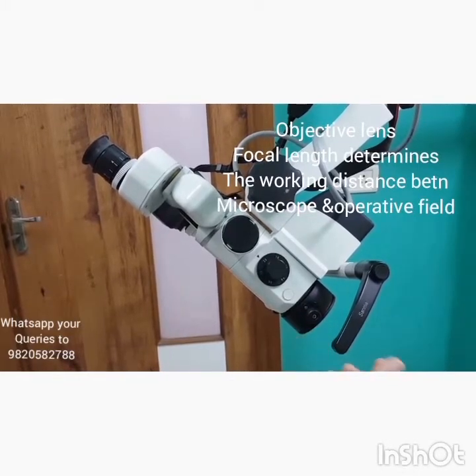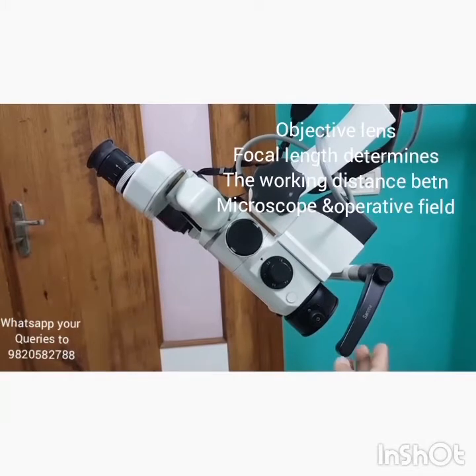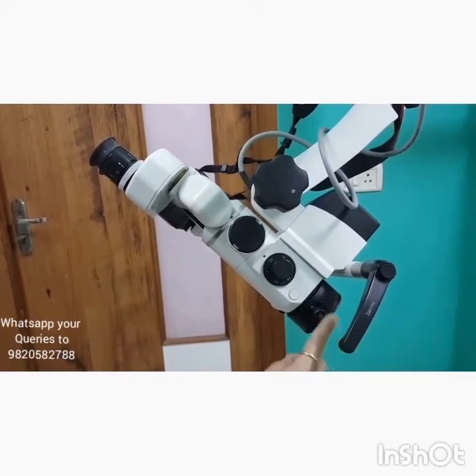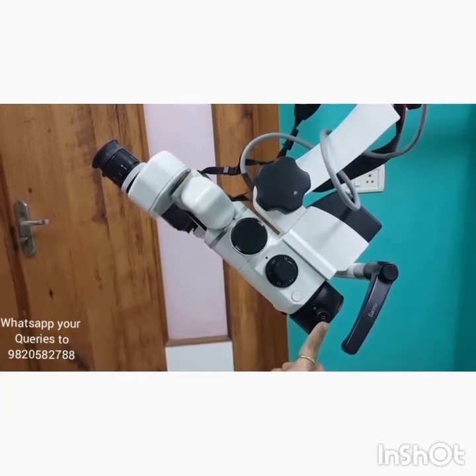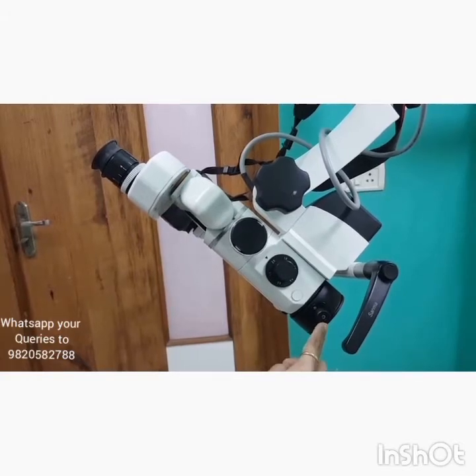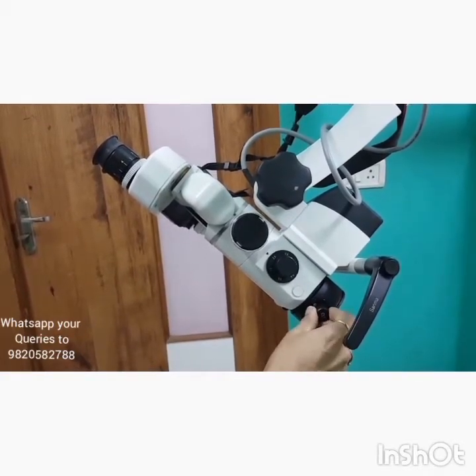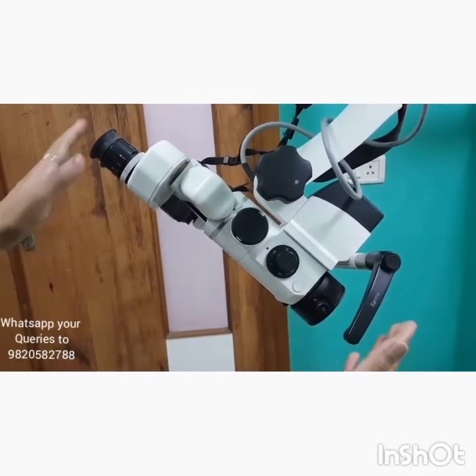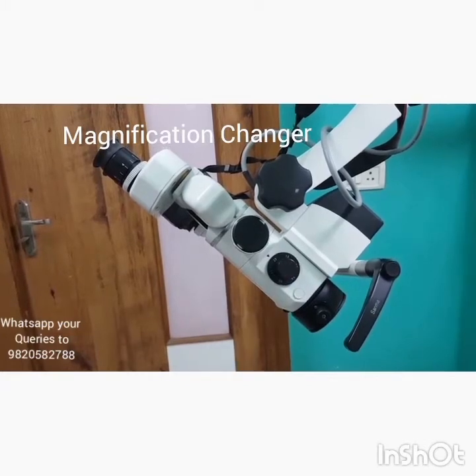The objective lens has a focal length of 250 mm, though it can optionally be 200, 300, or 400 mm. It has the facility of fine-tuning to get a better focus of the object. Up to 15 mm of movement can be achieved by moving the knob placed here.